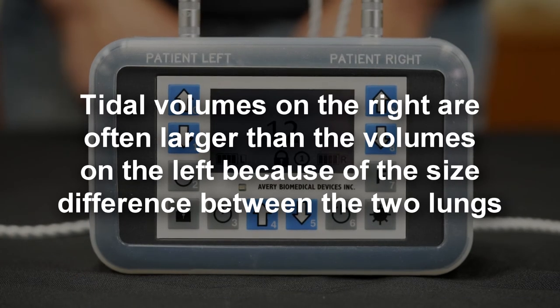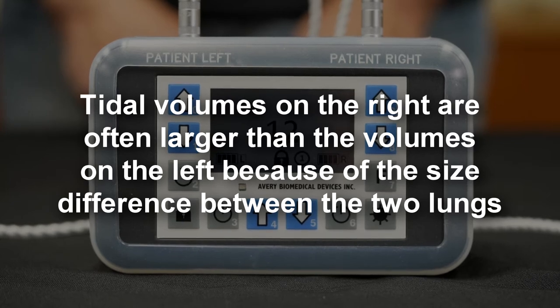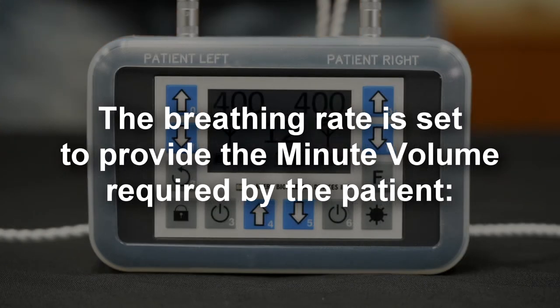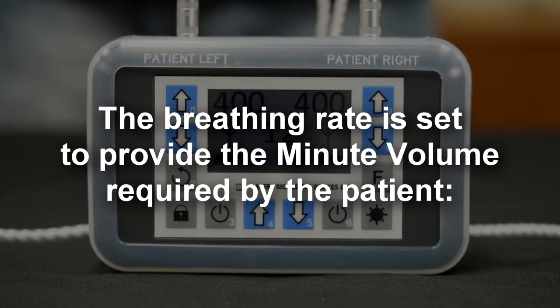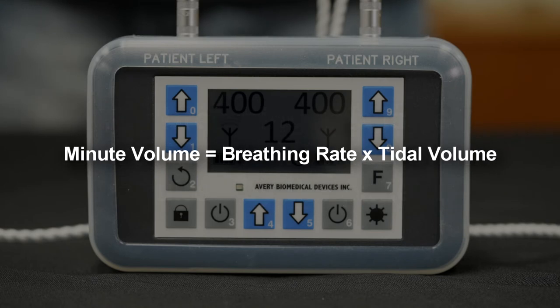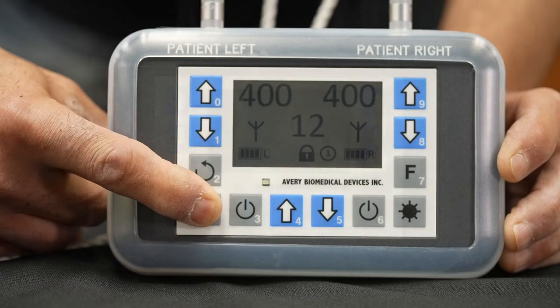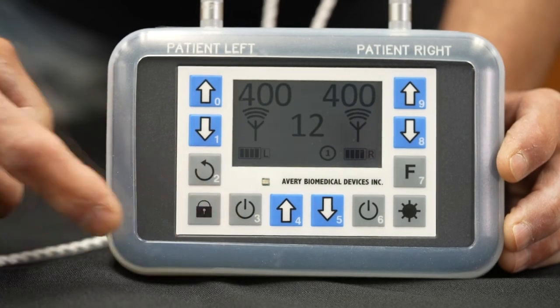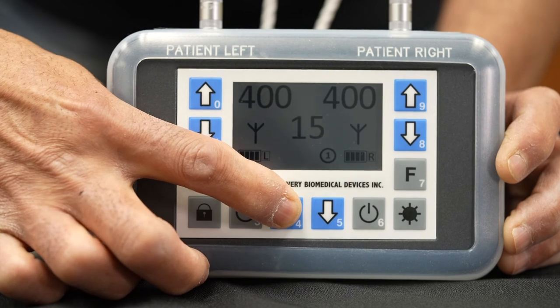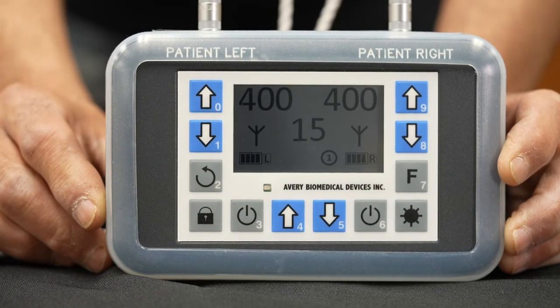Tidal volumes on the right are often larger than volumes on the left because of size difference between the two lungs. The breathing rate is set to provide the minute volume required by the patient. Minute volume equals breathing rate times tidal volume. The breathing rate is factory set at 12 BPM and should be adjusted to provide adequate ventilation dependent on the tidal volume obtained and the minute volume requirement of the patient.